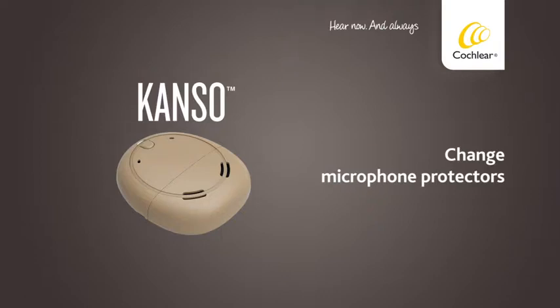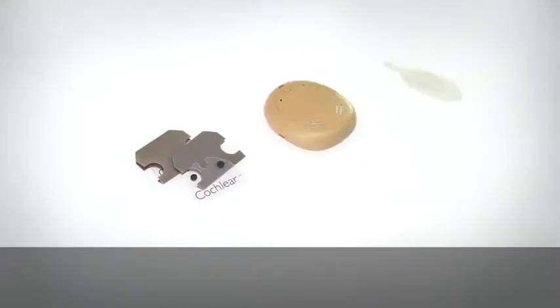Change microphone protectors. Replace your microphone protectors every three months, or if they look dirty or if you notice any loss in sound quality. Always replace both microphone protectors at the same time.